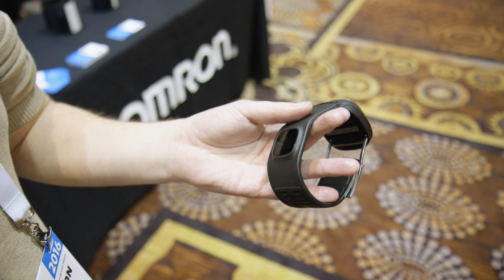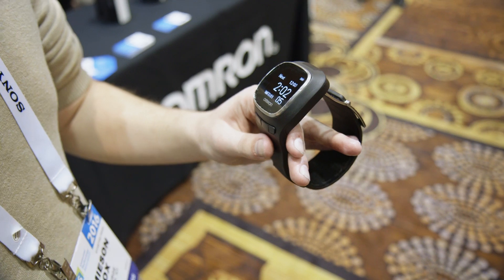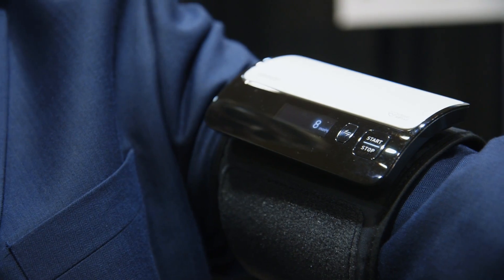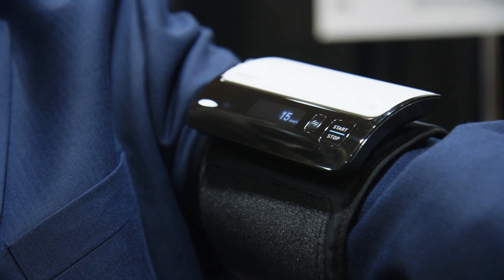It's the same thing you would feel if you were at a drugstore testing out the store's blood pressure monitor — the exact same kind of motion. Once your results have been recorded, you can send them to your phone via an app through Bluetooth pairing, which is pretty convenient in terms of monitoring.